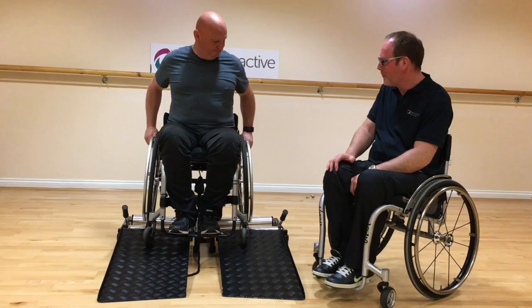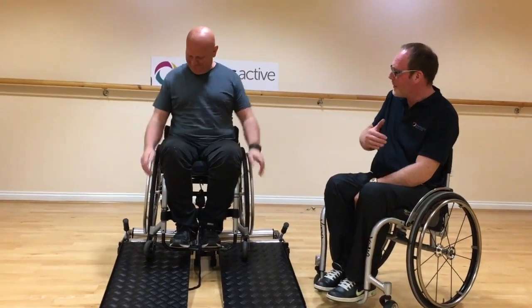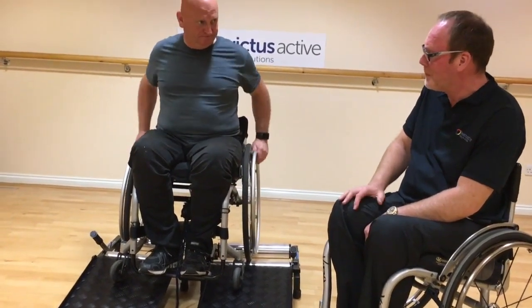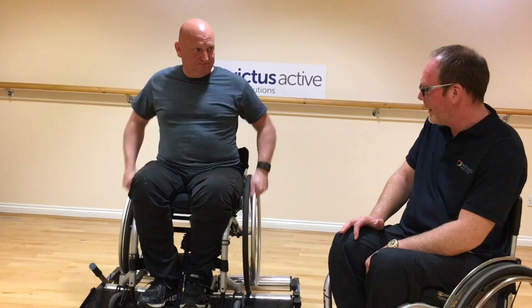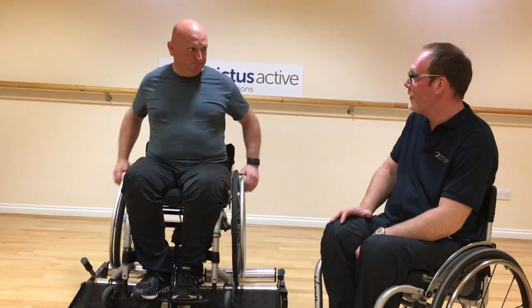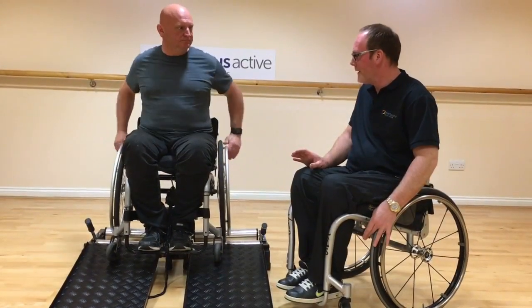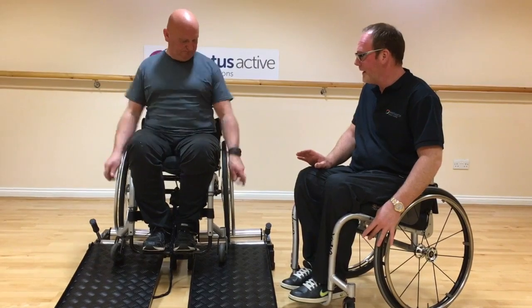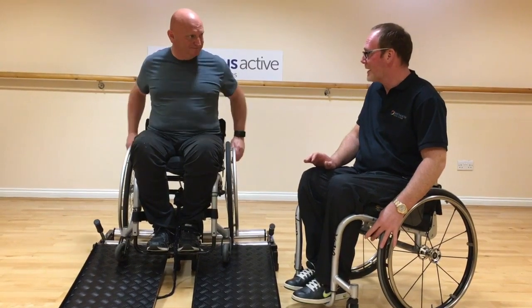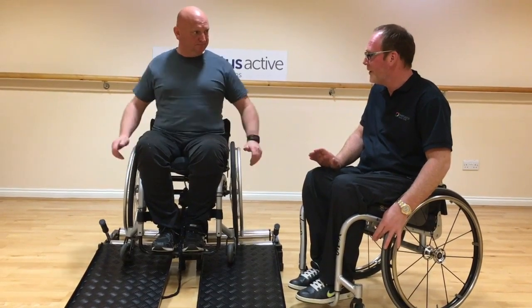Now we've pumped the Marathon Pluses up to 140 PSI — hopefully you can feel a difference pushing on the trainer. When we talk about high pressure tyres, we mean tyres that operate in excess of 100 PSI; anything below that is not considered a high pressure tyre. Some people push on tyres at 70 or 80 PSI, but personally I don't push on a tyre below 130 PSI because of the additional load it puts on the shoulders. I'd also recommend completely avoiding solid tyres — using them feels like constantly pushing on a flat tyre. Always use pneumatic tyres at high pressure; personally I like Marathon Pluses.